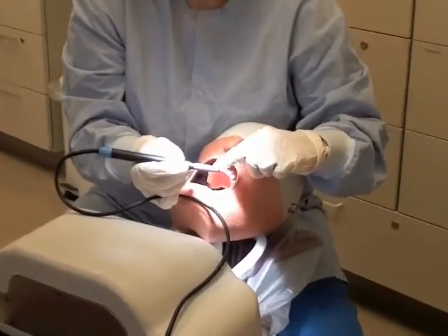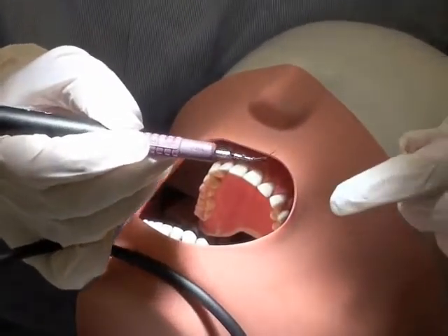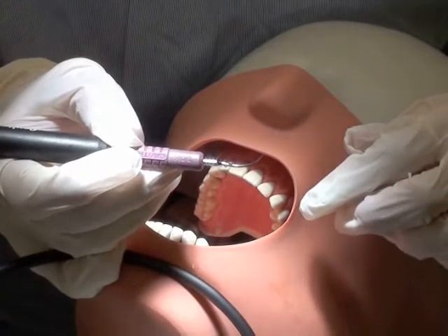This insert has a purple resin portion. It's also a universal design, but it's your thinsert and it can be used at a higher power, up to a high power, unlike the universal that we just saw.